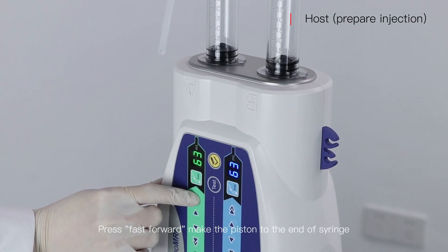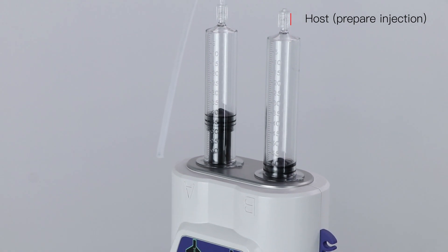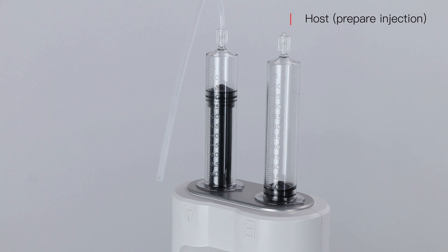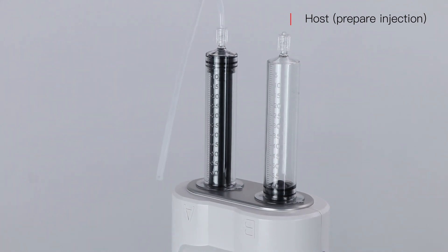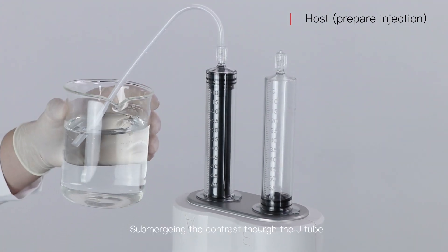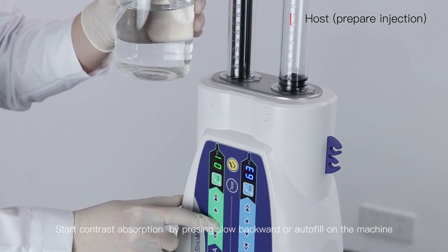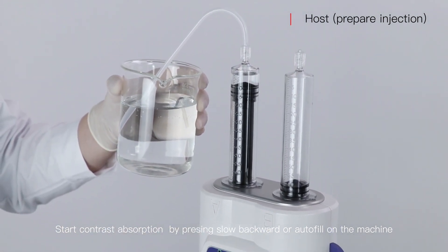Press fast forward to move the piston to the end of the syringe. Submerge the contrast through the J-type tube. Start contrast absorption by pressing slow backward or auto fill on the machine.